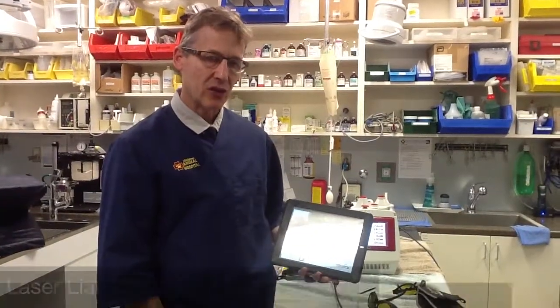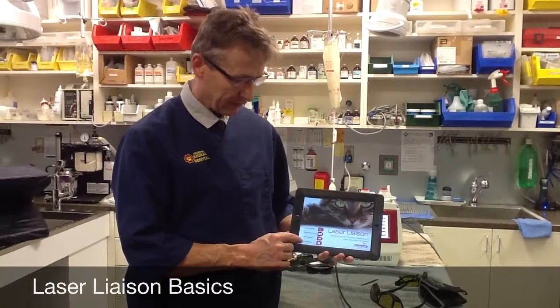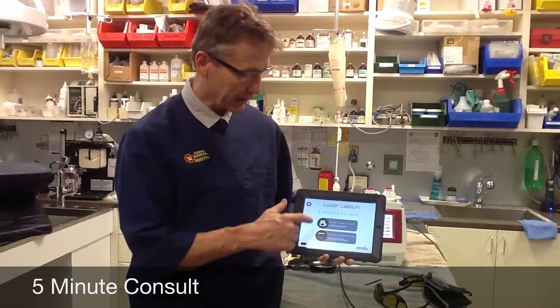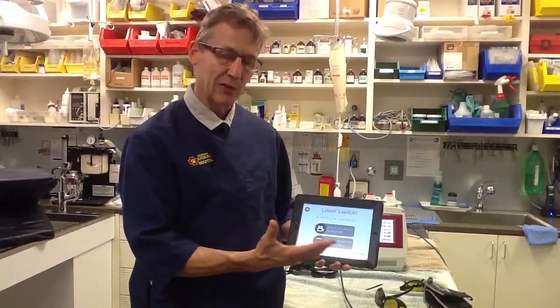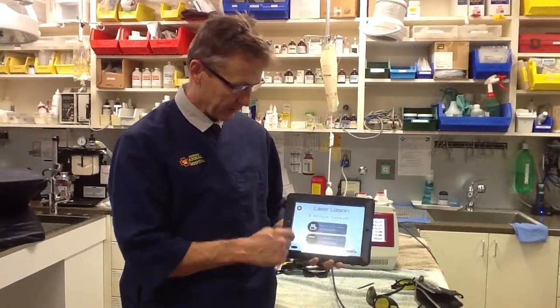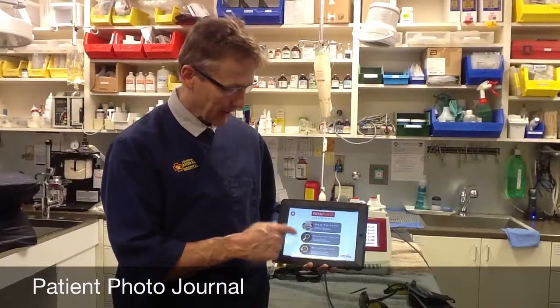Here's a quick introduction to your laser liaison app and marketing program. On the laser liaison app you have basically four tabs. The five-minute consult is the fastest way to show your clients something quick — you can watch the intro video, which features people talking about their experiences with laser therapy, or go to the laser presentation, which is about an 18-slide presentation explaining how lasers work. You can also go to your patient photo journal, where you can enter a patient, search for a patient, or back up records.